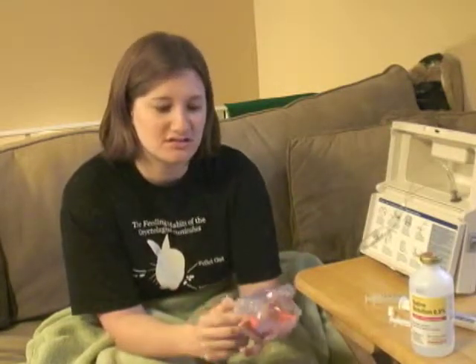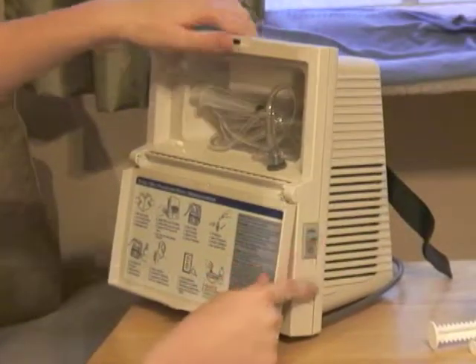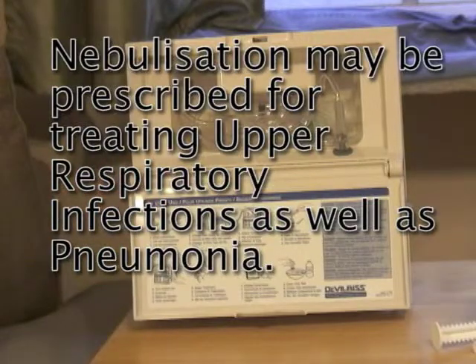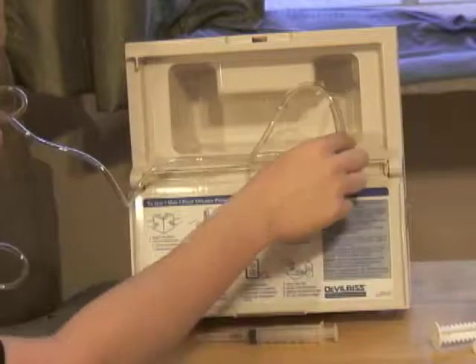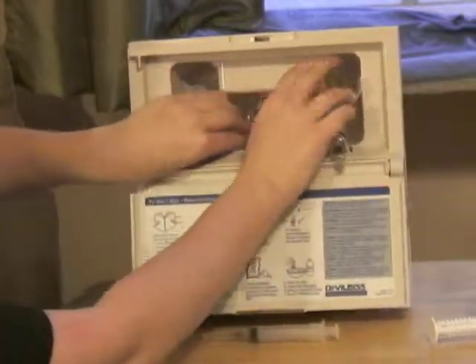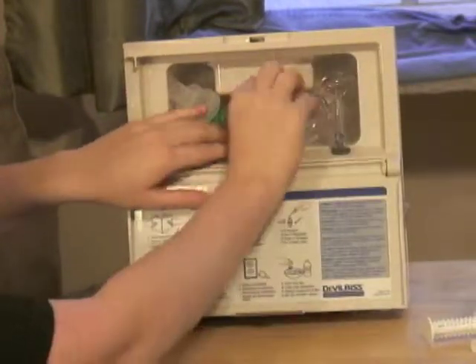It's not like you're torturing your bunny — you shouldn't feel bad if you have to do this, because it's actually a really clean mist. When it comes through here it doesn't smell weird or anything. You can see on the side here this is our power button. Back here you can see the power cord. The tubing is attached right here — this is where the compressor pumps out the air. You can just kind of roll your tube up and try not to crimp it, and kind of just store all your stuff right in there.